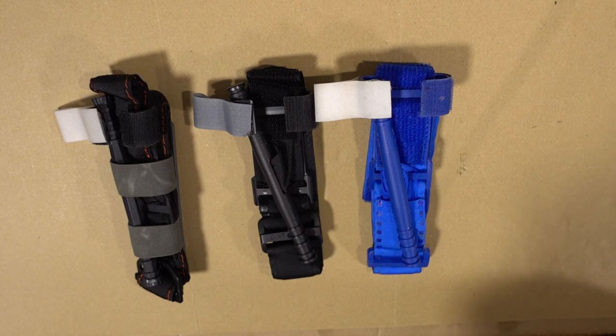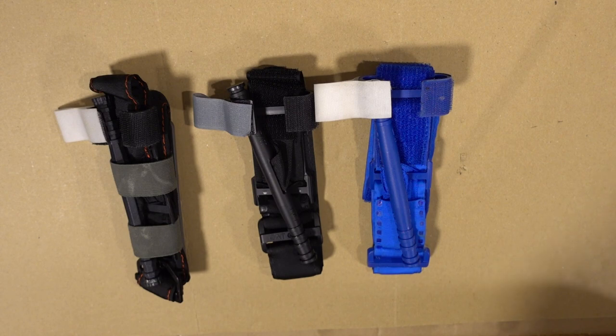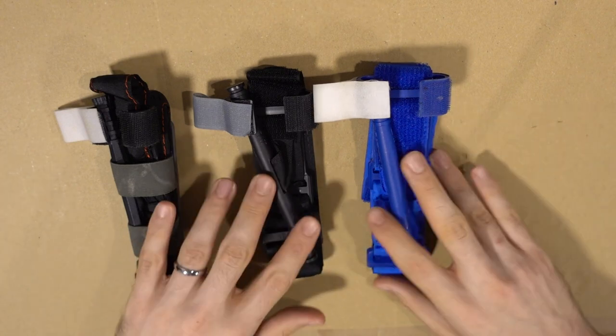Here comes the little caveat. Where can you apply the tourniquet? It's only on your extremities, so arms and legs. And where exactly?